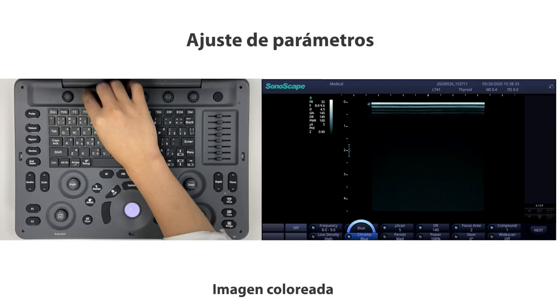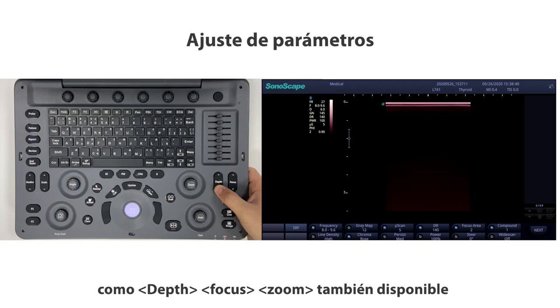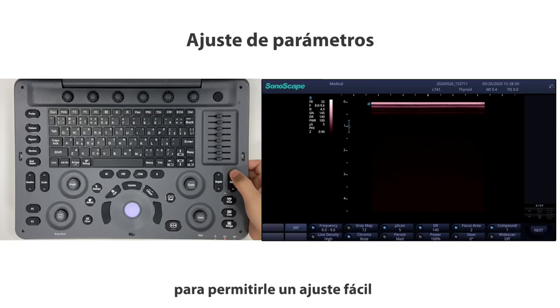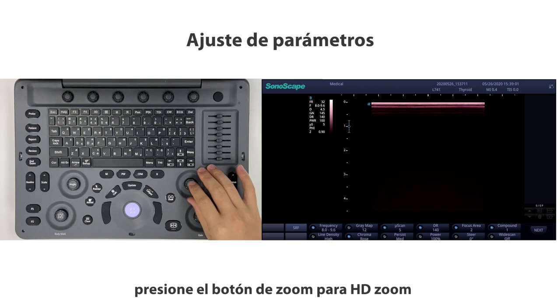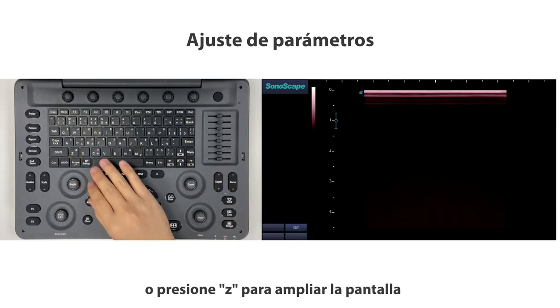Chroma colorizes the image. Other frequently used parameter buttons such as depth, focus, and zoom are also available on the control panel to let you have an easy adjustment. Here we have 3 ways to zoom your image. Switch the zoom button for read zoom, press the zoom button for write zoom, or press Z for screen zoom.